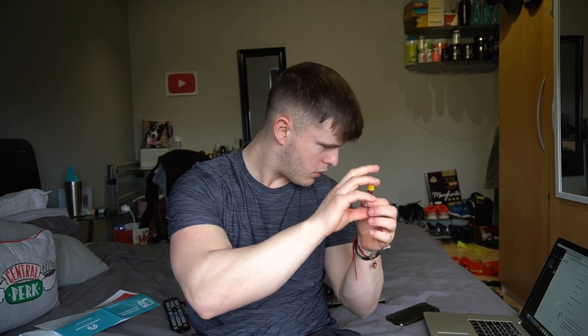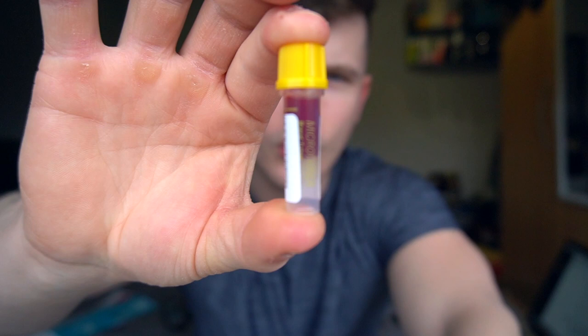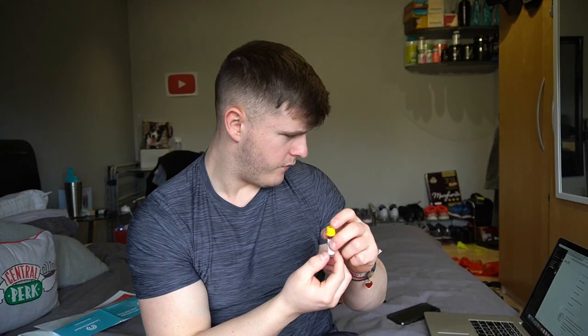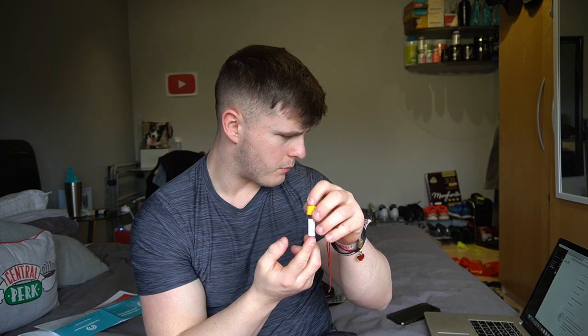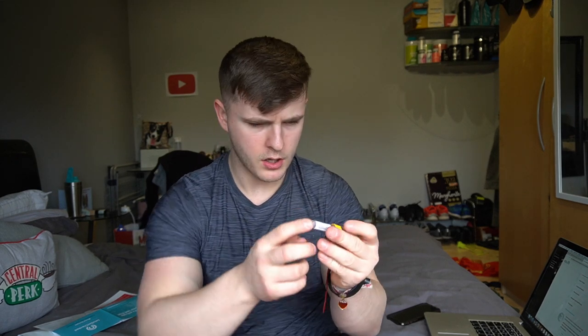Where's the lid? Found it — I was sat on it. It's all good. Place the lid back on the blood collection tube and press down firmly. So it's not a screw top, it's a press — until you hear a click. Perfect. Invert the tube five to ten times. This is vital for the sample to be prepared. Okay. Place the biohazard bag with samples back into it.